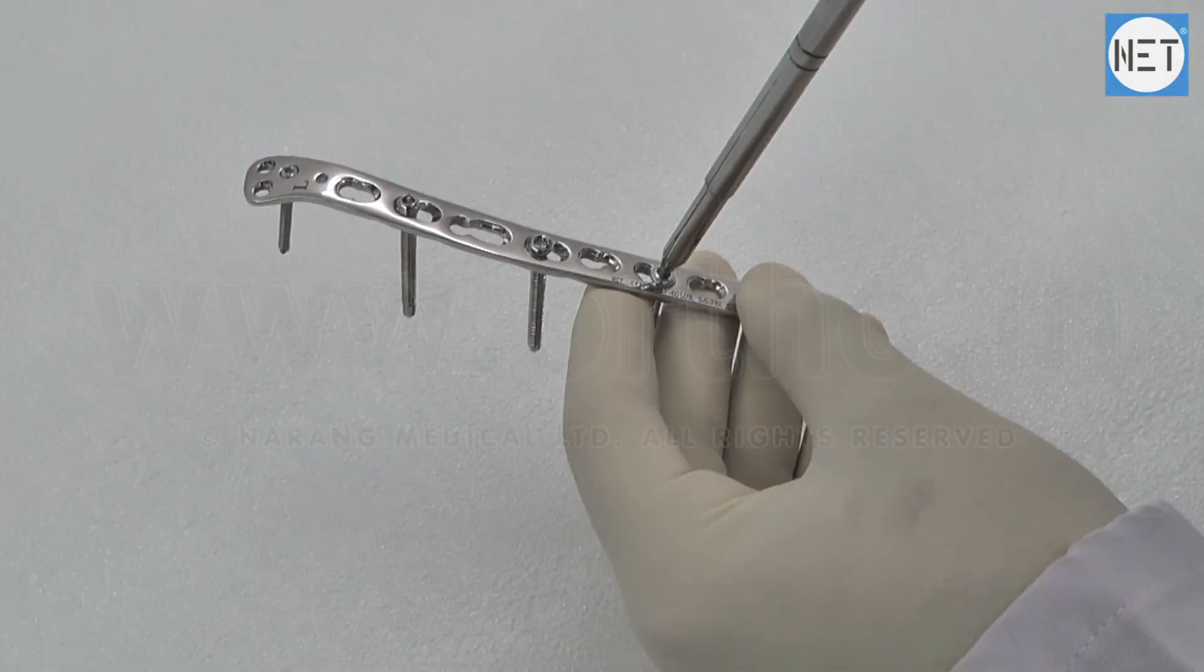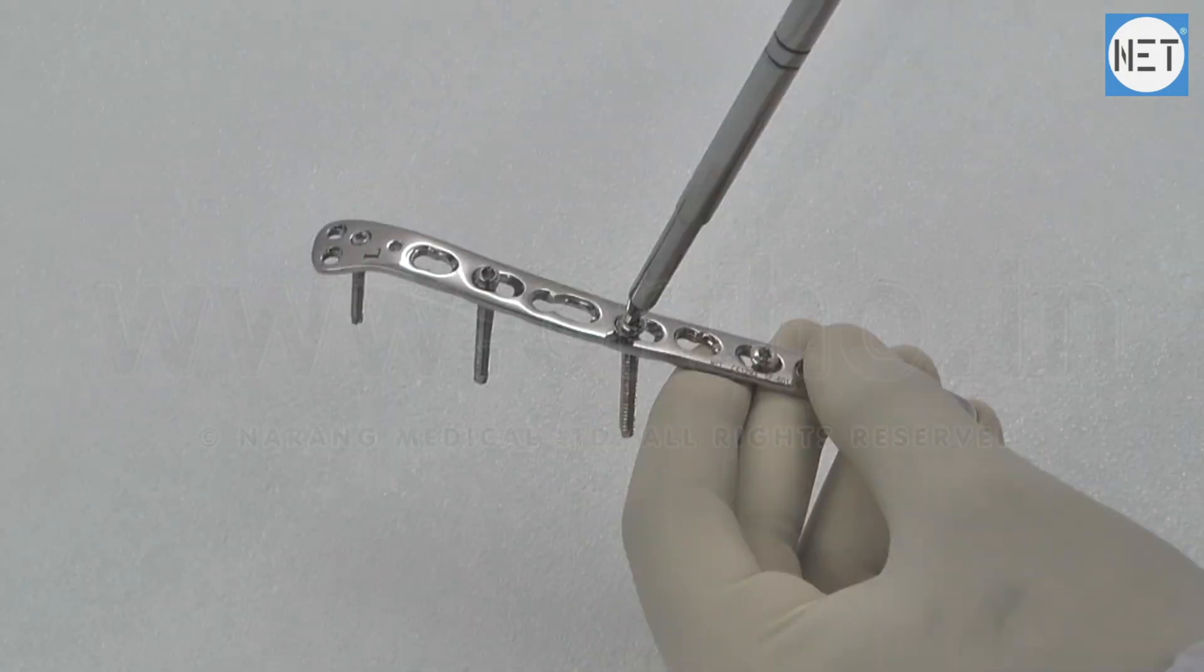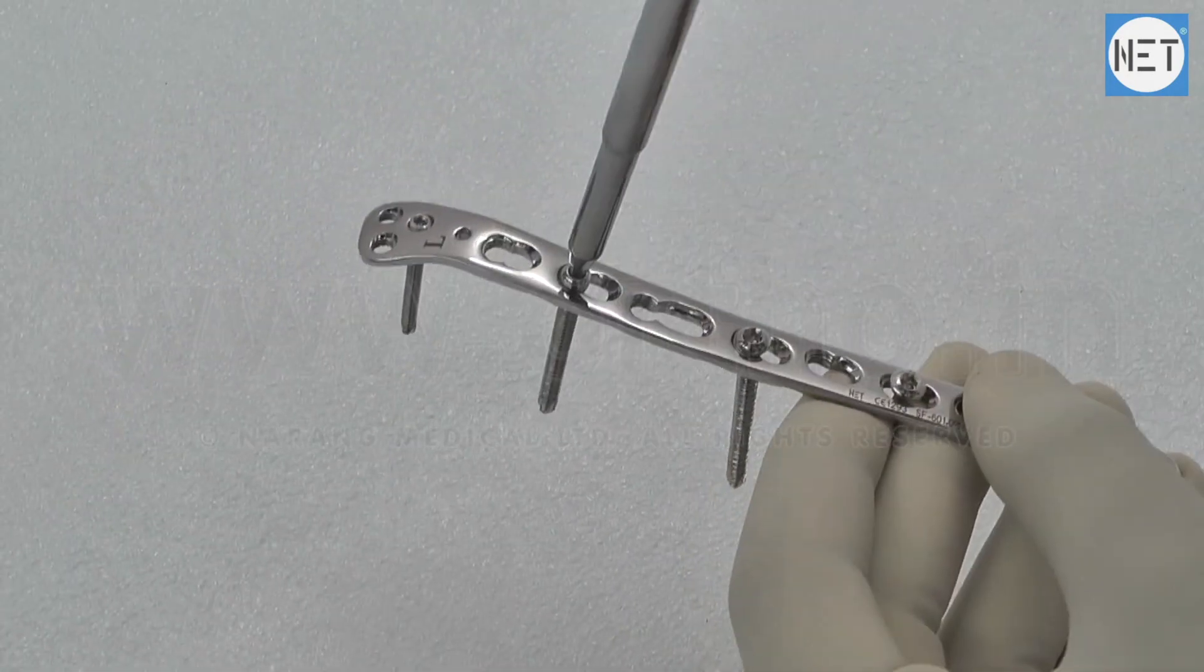The plate offers multiple screw configuration for the medial and lateral columns and the articular block.